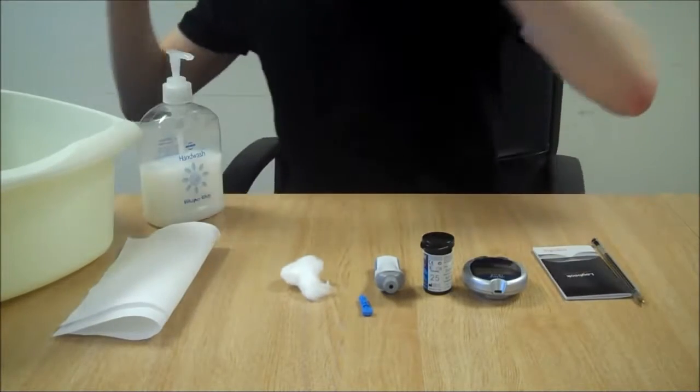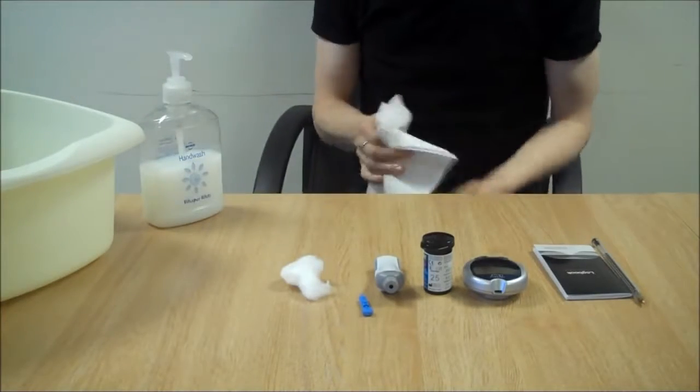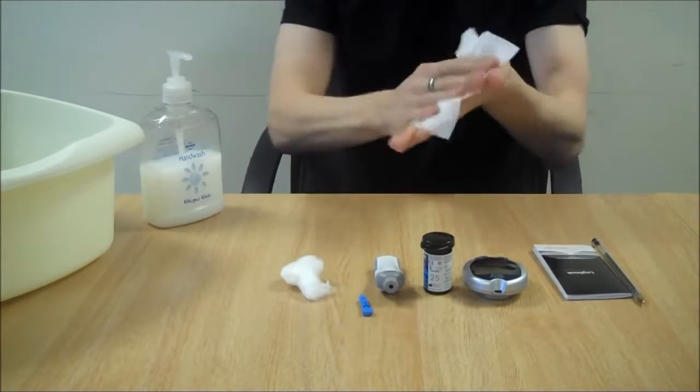Wash your hands first. Make sure your hands are thoroughly dry before starting the test.